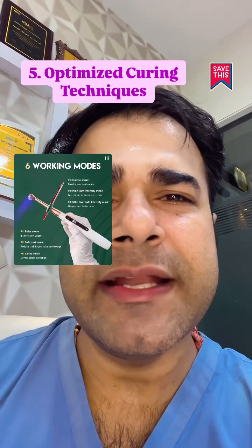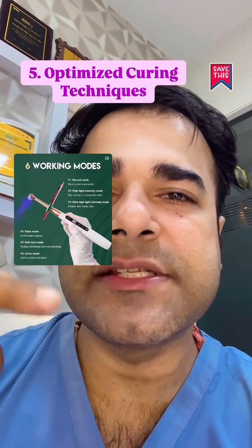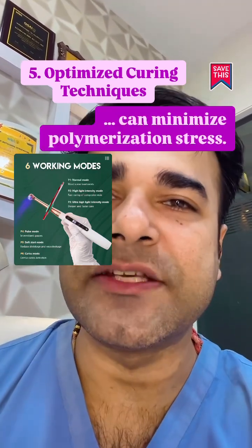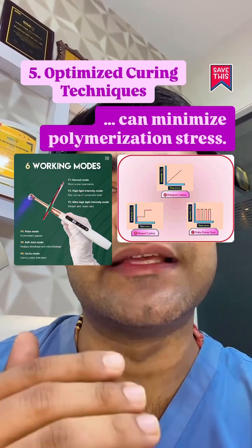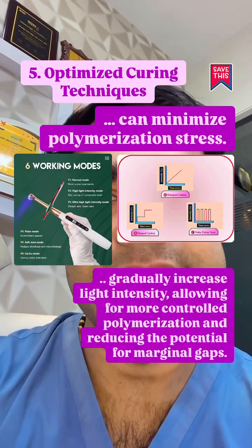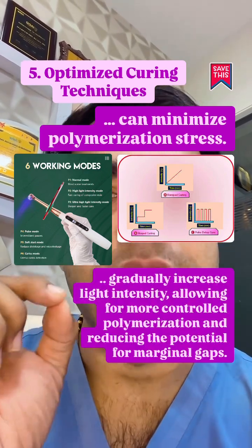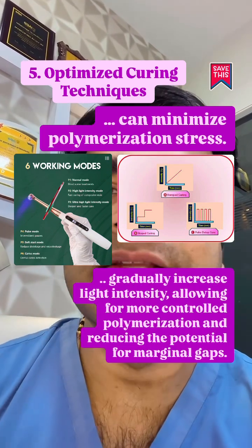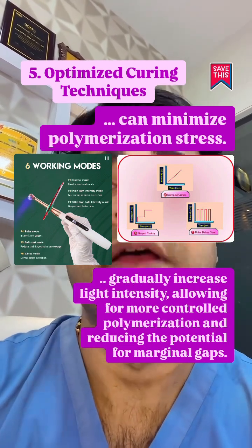Optimized curing techniques: implementing soft-start or pulse curing techniques can minimize polymerization stress. These methods gradually increase the light intensity, allowing for more controlled polymerization and reducing the potential for marginal gaps.